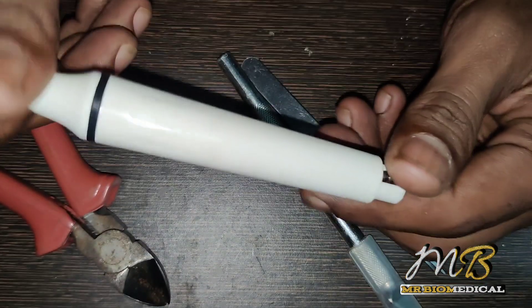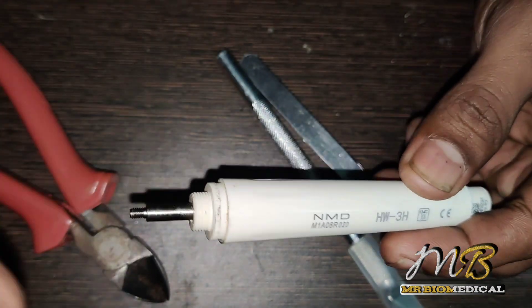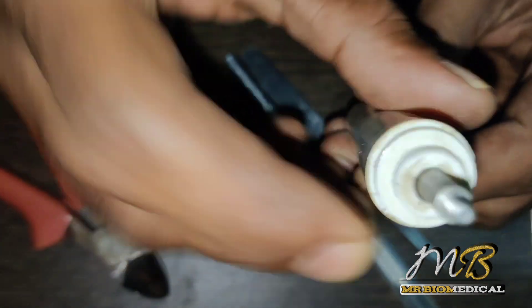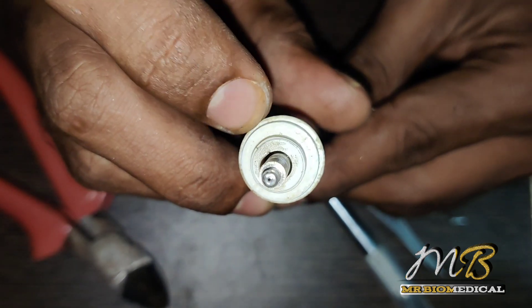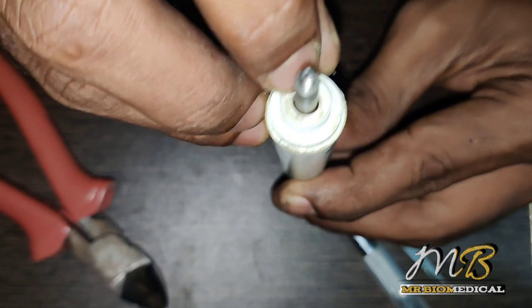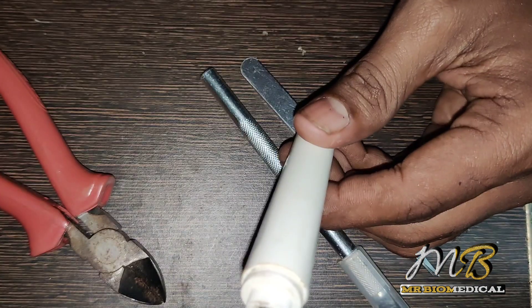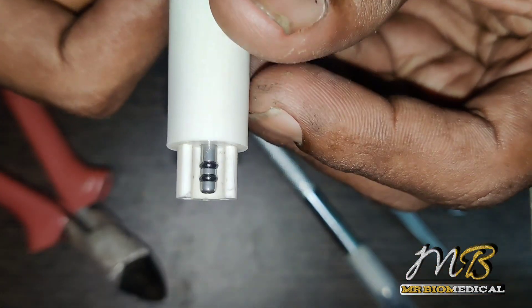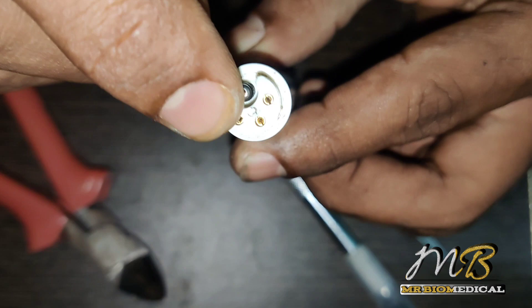So this is the handpiece. We will open this one — this is the tip where the water is coming out, or maybe the water is coming through this gap. This part is for fixing the blade: size one, size two, size three, size four blades are available. Here we can see two O-rings to avoid leaking.